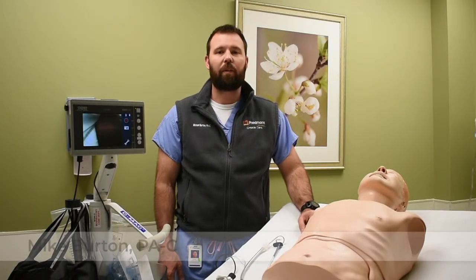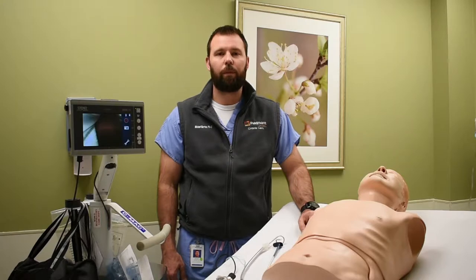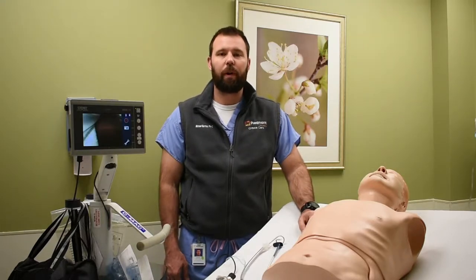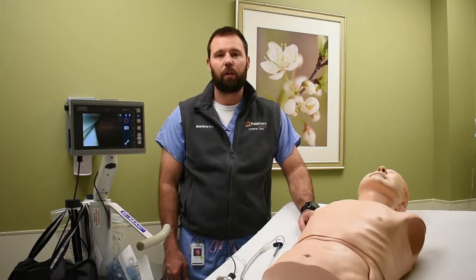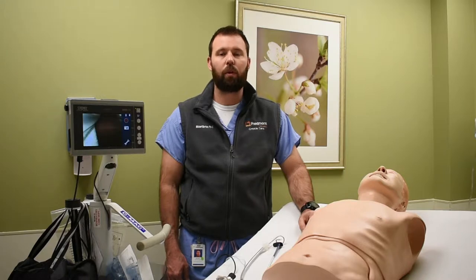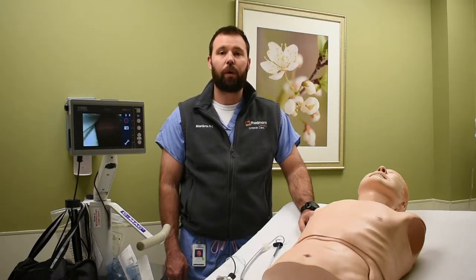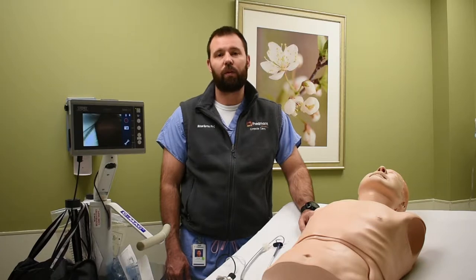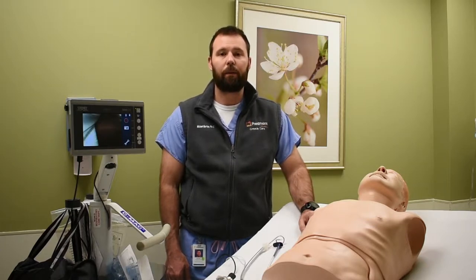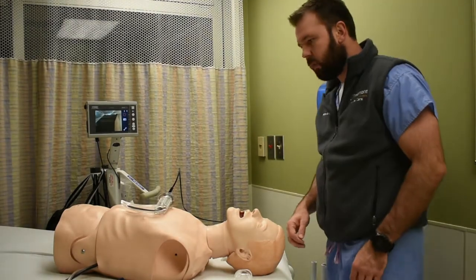Hi, I'm Mike, and we're back for another episode of Resuscitation Education. Today we're going to talk about how to intubate using a video laryngoscope. Some of you may be familiar with direct laryngoscopy, or perhaps you're new to intubating and VL will be the technique you learn first. Regardless of where you are in your intubating career, it's important to know the fundamental differences between DL and VL to have better first-pass success and minimize complications. For this video, we'll assume we've done an airway assessment, completed a pre-intubation checklist, and have a plan A, B, and C — with video laryngoscopy as plan A.